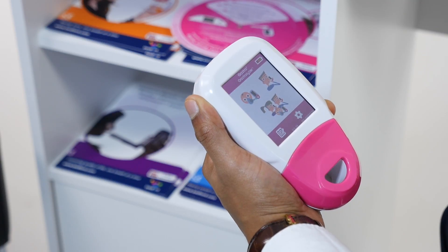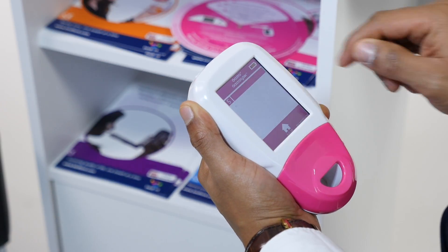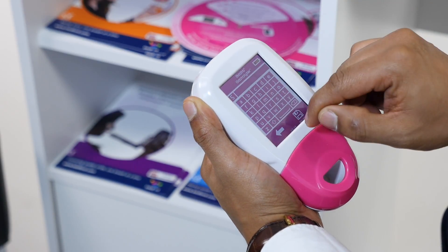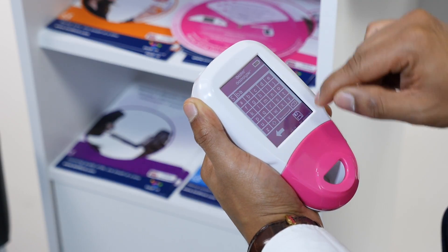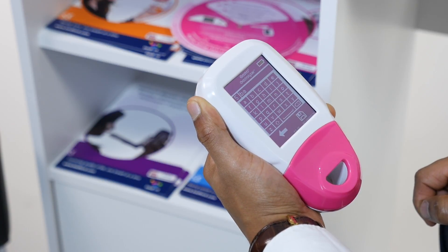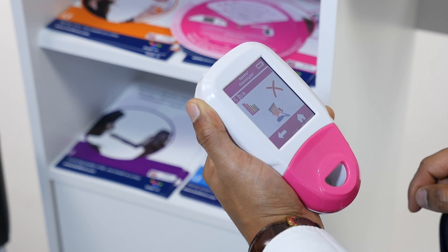The GastroPlus Gastrolyzer can store up to 10 patients on the device. To add a patient, first click on Register, then click on a blank slot, which will take you to a new profile. Click on the blank slot again at the top of the screen and use the keypad to enter their name or patient ID. Once you have entered this, click the save icon to register the changes.